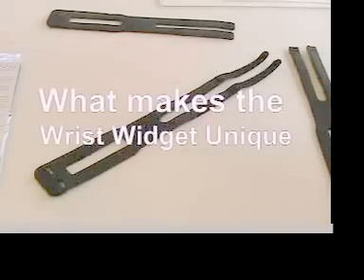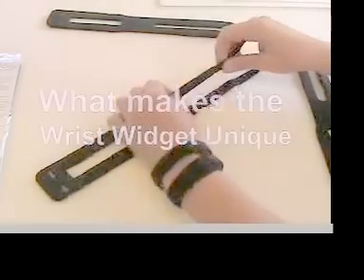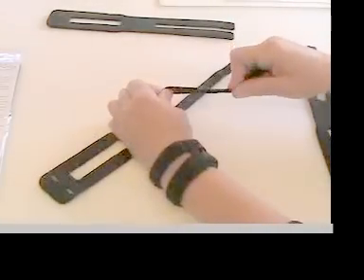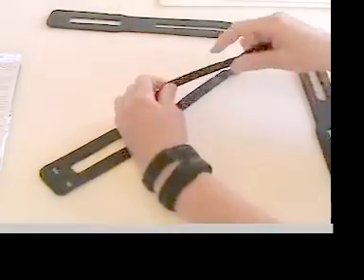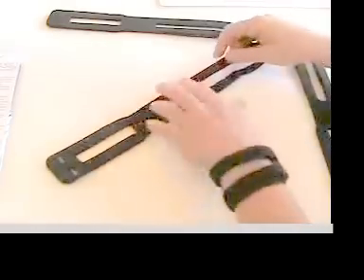What makes this splint unique is it is non-elastic. It does not stretch when you pull on it.